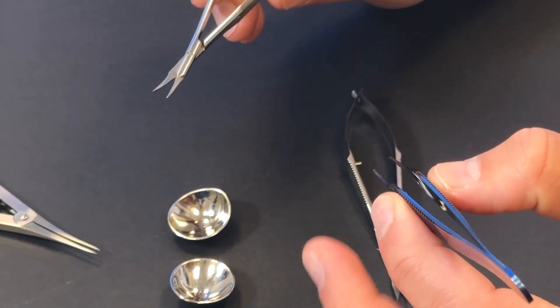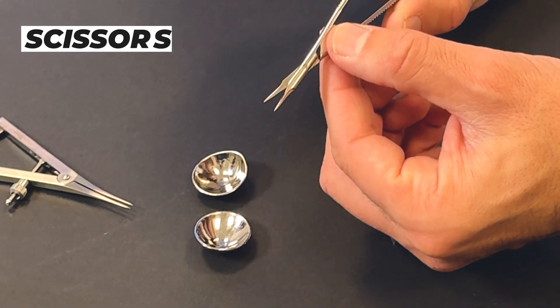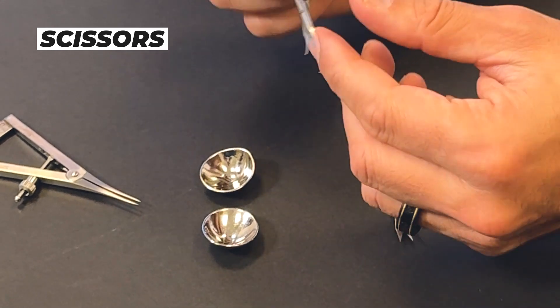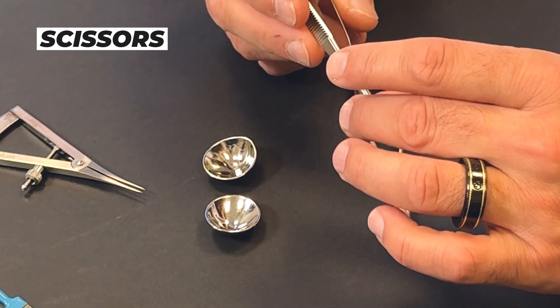These are specialized scissors. They're Westcott scissors. As you can see, they're spring-loaded for optimal control. I learned to use these when I was in ophthalmology residency at Stanford, and they've kept with me. There's different kinds. I like this particular kind that's not too big and not too small, and I generally make my incisions with this in a very fine fashion.